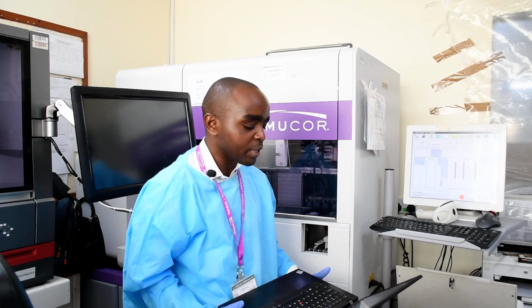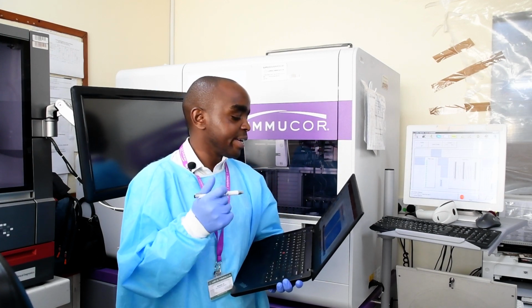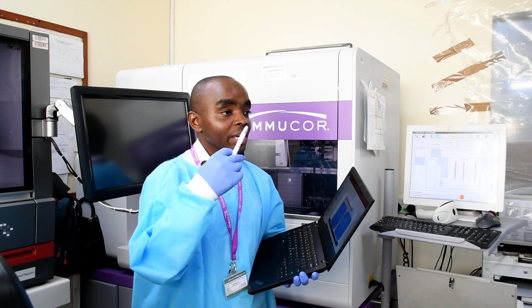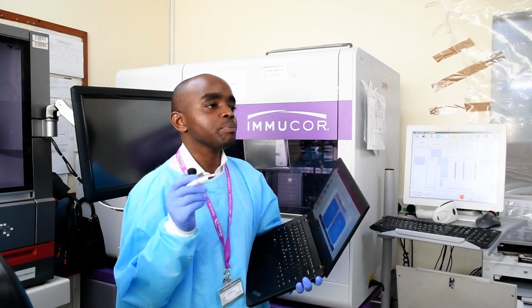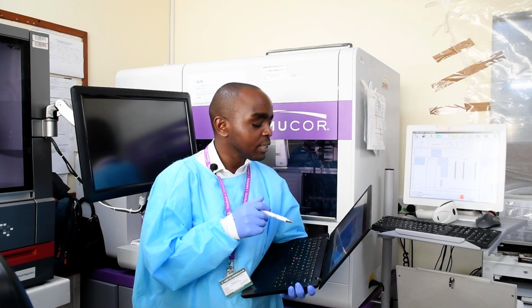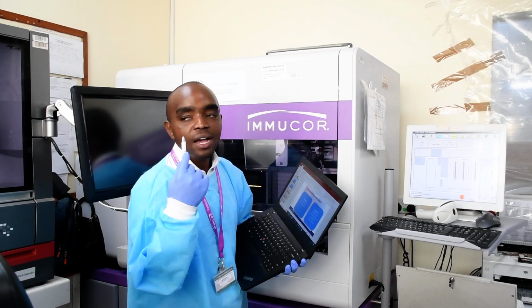use the untreated barcoded plates, the one that we use for blood grouping, and the reagents that will be used are just those microplates and the reference cells, A1 and B. Immucor also provides for A2, but for us in Kenya we have reference A1 cells and reference B cells. So either A1, A2 and B cells, depending on whether you are doing anti-A or anti-B titer, then you will have to use the anti-A reference cells. So it's according to whatever you are doing.